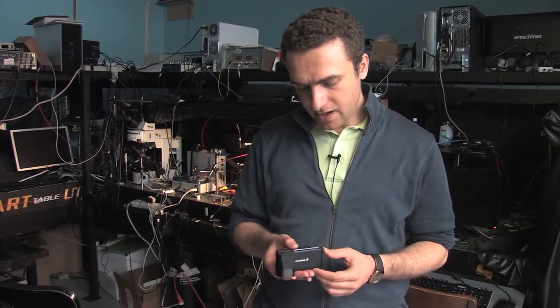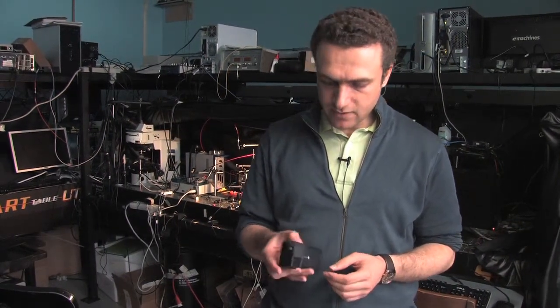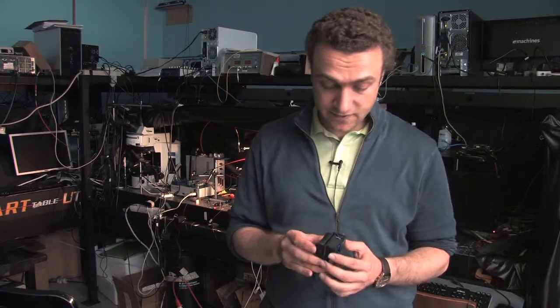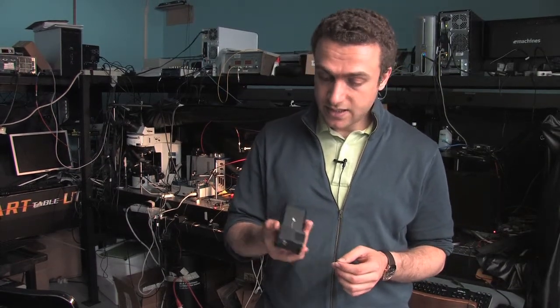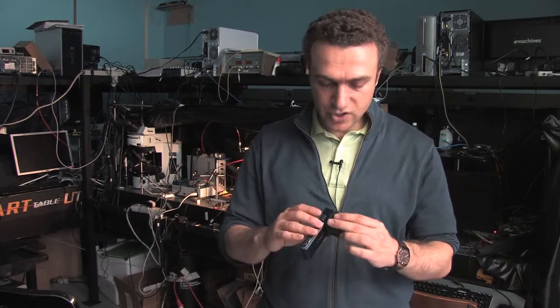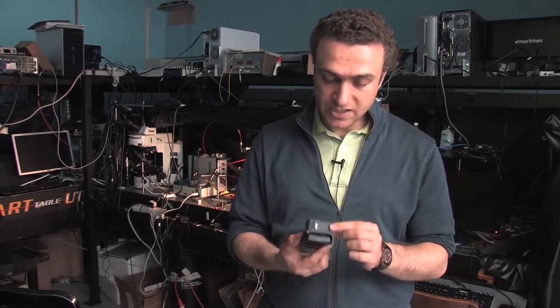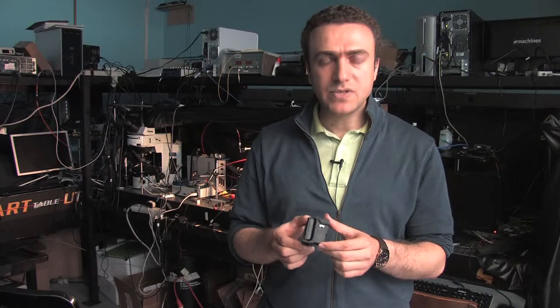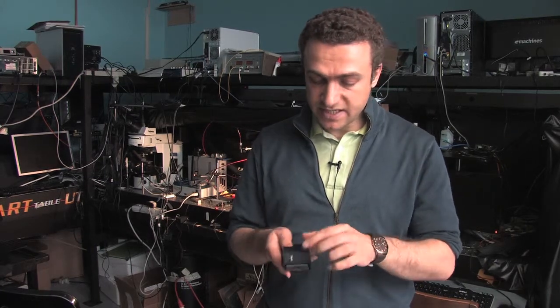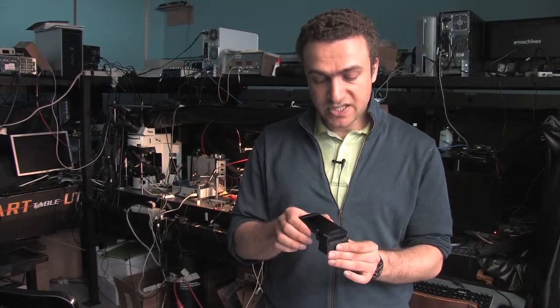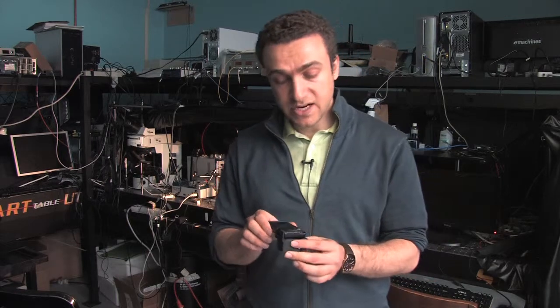Similarly, utilizing the hardware and the software on the cell phone is also providing us new opportunities to, for instance, conduct fluorescent microscopy on the cell phone. This is actually an attachment to the cell phone which is on the order of a matchbox in size, around 30 grams in weight and very inexpensive.